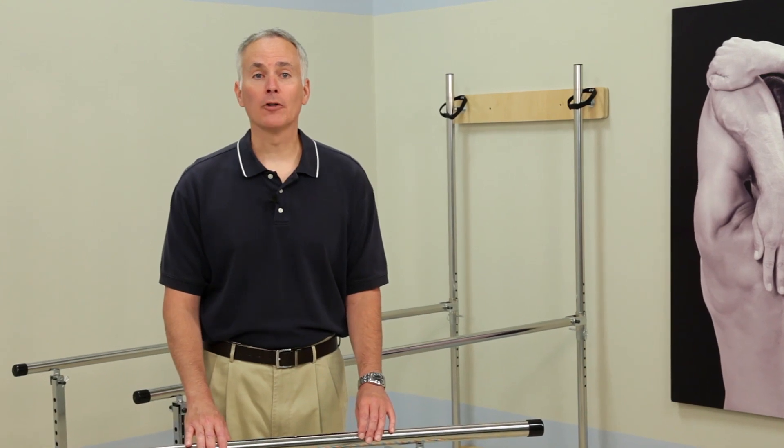All Clinton parallel bars are quality engineered and built to withstand years of vigorous use in physical therapy environments, and best of all, like all Clinton physical therapy equipment, they are value priced to fit nearly every budget.